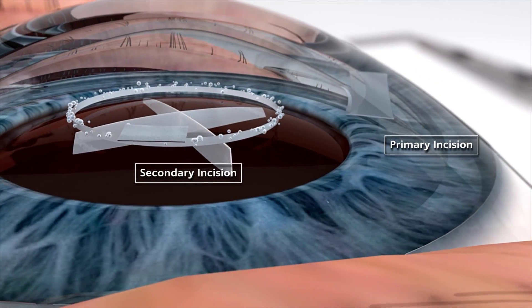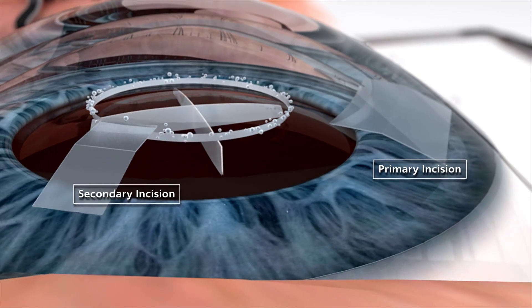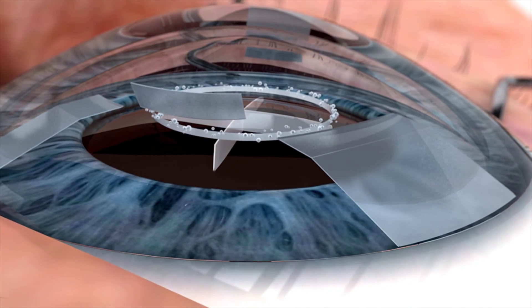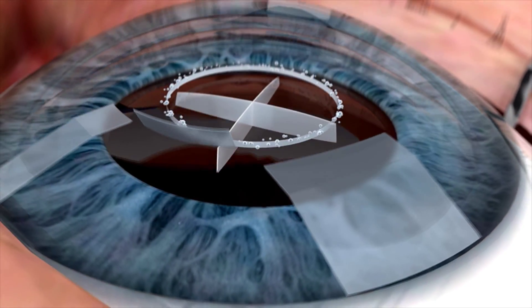Finally, the primary and secondary corneal incisions are created, as well as arcuate incisions. The laser can even perform multi-plane incisions to help promote wound sealing.